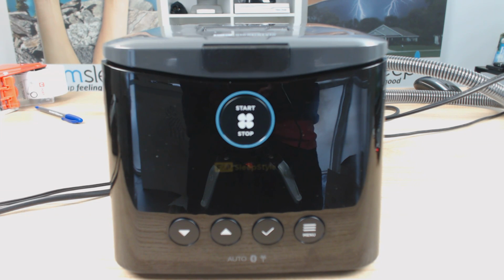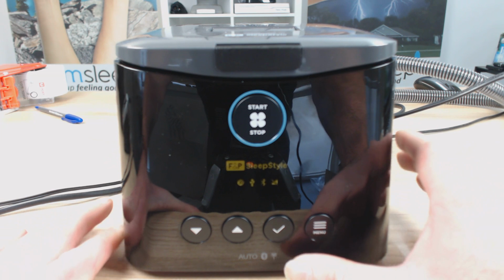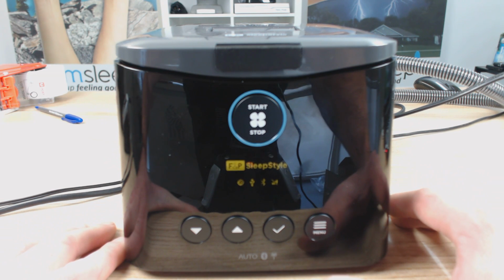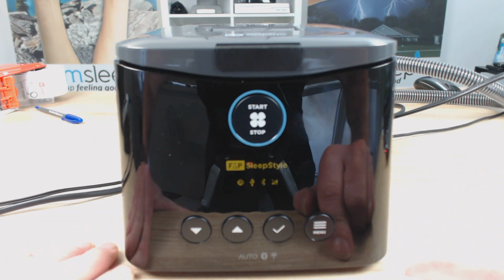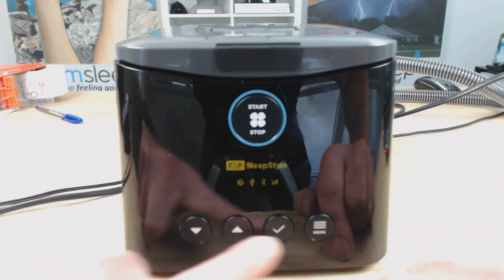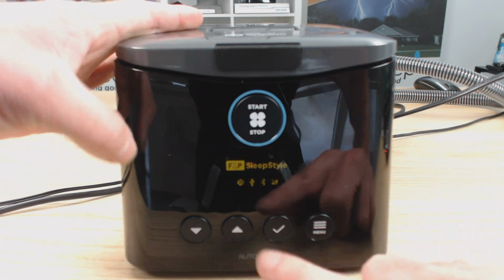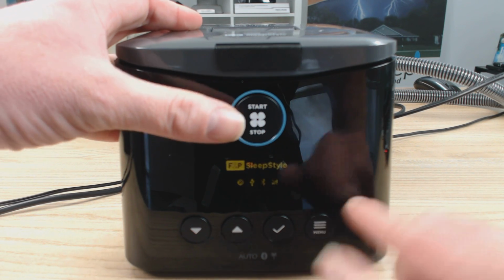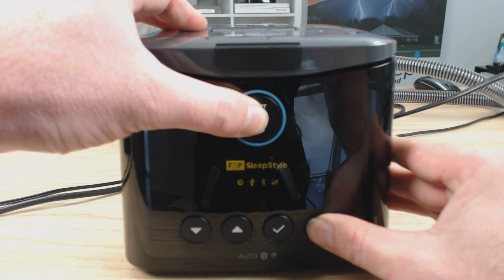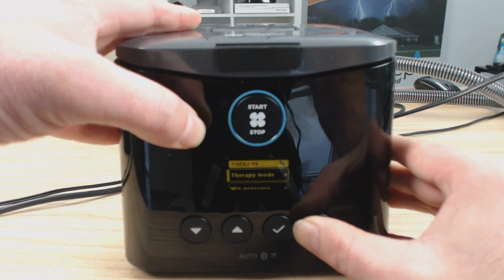So without further ado, let's get stuck in and have a bit of a look-see here. So I've just got the machine here at the front. Now, to unlock the machine and get into the clinical menu, we have to press a number of buttons. And with this machine, we can press either of the bottom 4 buttons and the top button and press them simultaneously and hold them down. So you can choose any of the buttons at the bottom and the top button here, the start stop button. So I'm just going to choose menu and start stop. Click and hold the buttons down. 1, 2, and it'll say clinician menu.